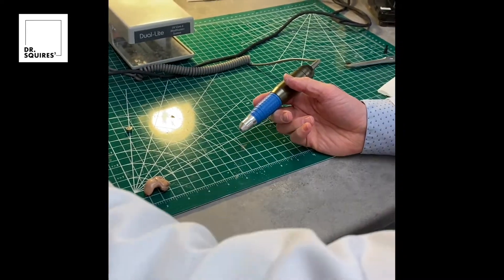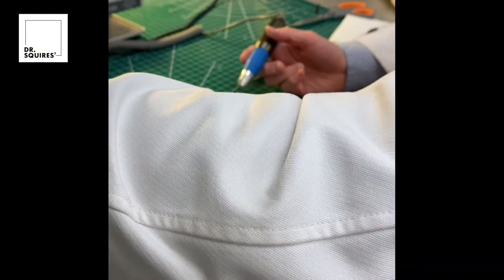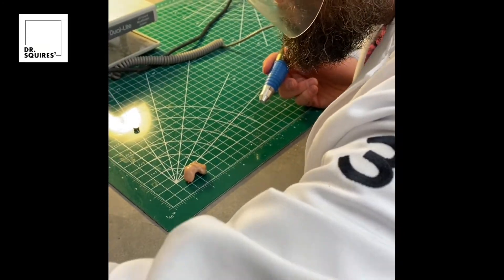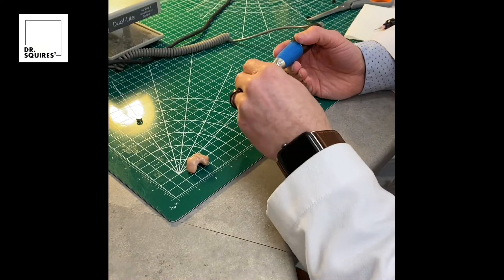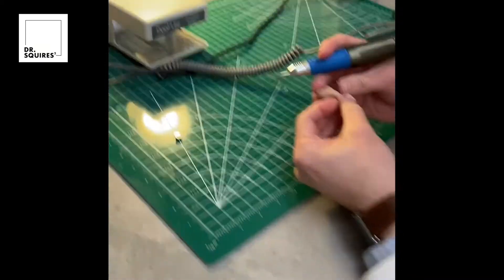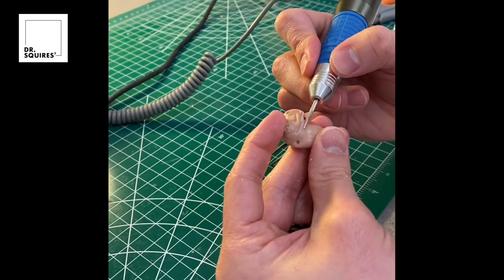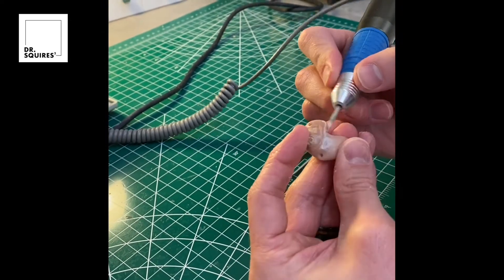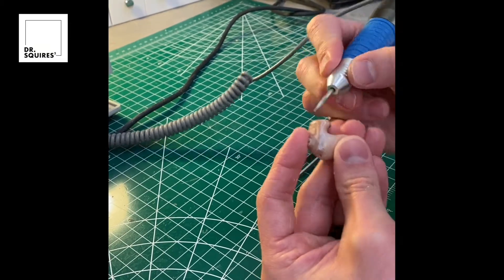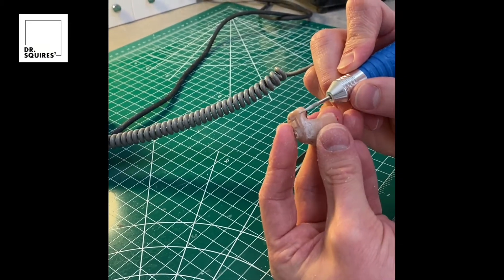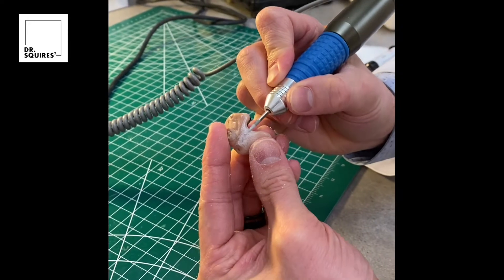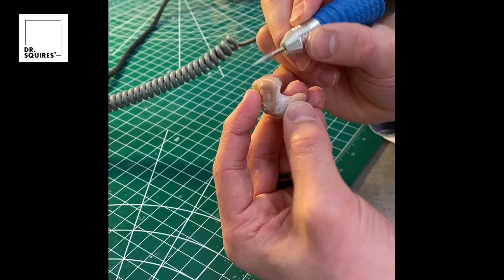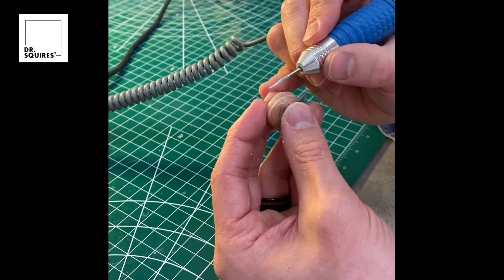We're going to switch our burr out for a file bit. This is going to be used to rough up the exterior surface of the hearing aid. We'll give the adhesive and the clear coat something to grab onto. I'll extend that groove that we just made and rough up the overall surface of the area we're going to be filling, and then ultimately I'll rough up the entire surface of the hearing aid because then I'll replace the clear coat after the repair is completed.